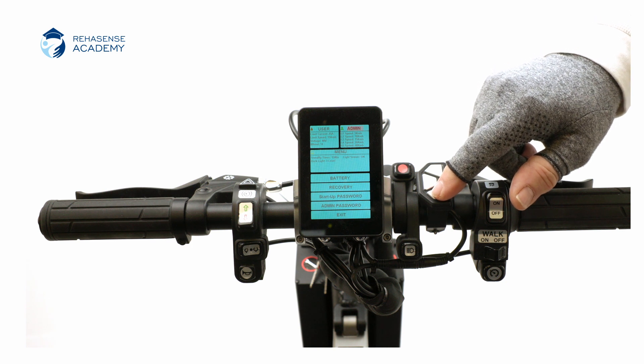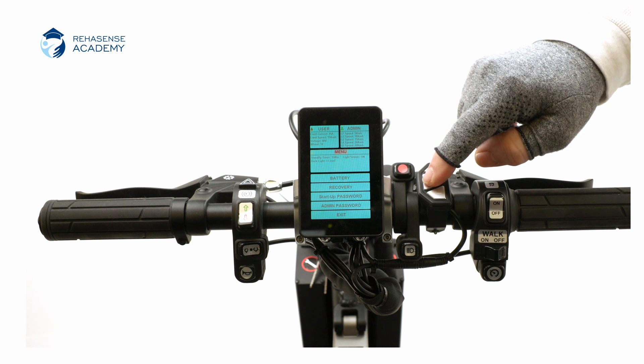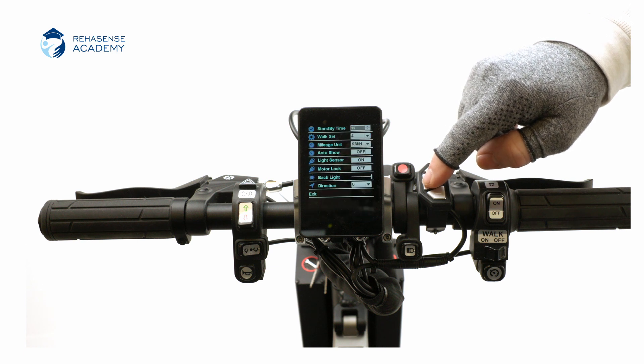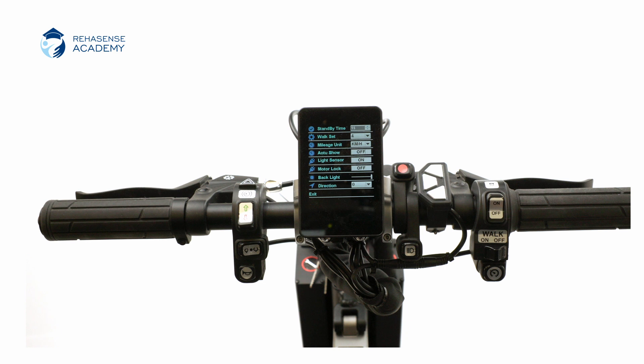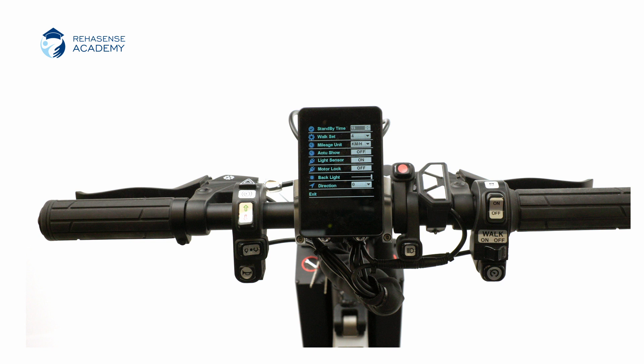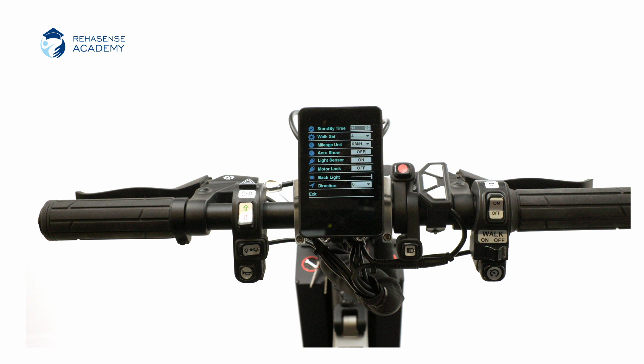The admin page is only to be accessed by a certified technician. The menu shows some parameters that can be changed. Standby is the time before the device is shut down if not in use. Walk set is the speed used for the walk speed control. The light sensor should stay on for safety reasons — it controls the surrounding ambient light and switches on the headlight when necessary.